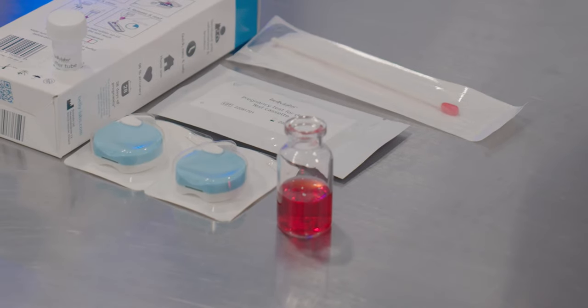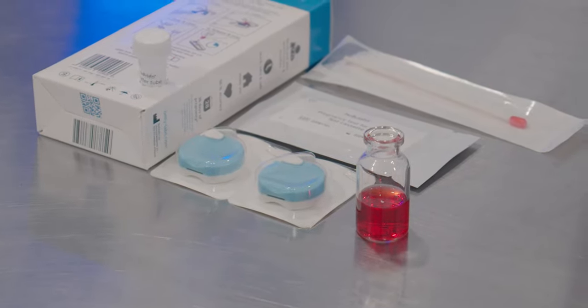For the purposes of this video, our dog blood will be represented by water in a vial with red food coloring.